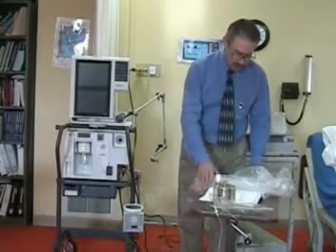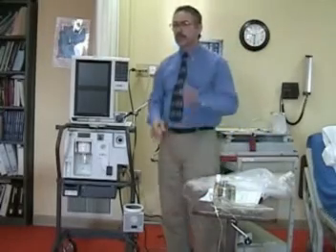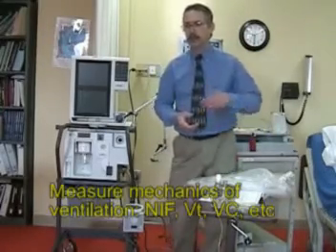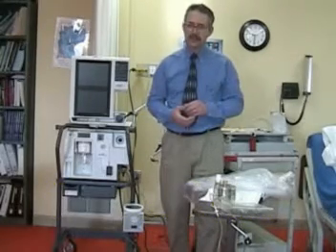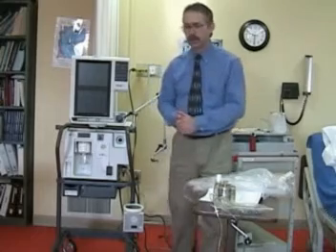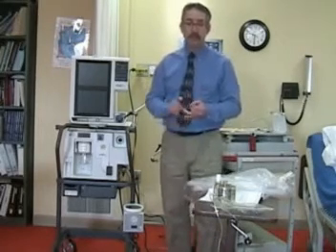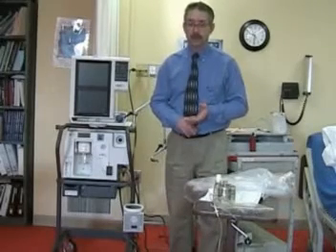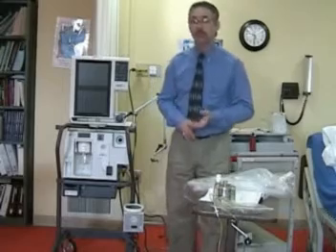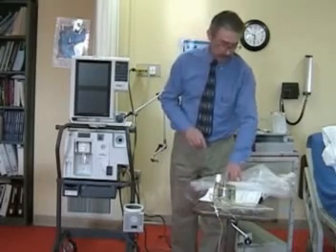Next, you'll want to measure the mechanics of ventilation. These things are necessary in some patients to ensure you know what the patient needs and why they're going on a ventilator. Mechanics of ventilation would include NIF, tidal volume, minute volume, as well as vital capacity. Will you be doing this on every patient? Probably not, but some you will need to.